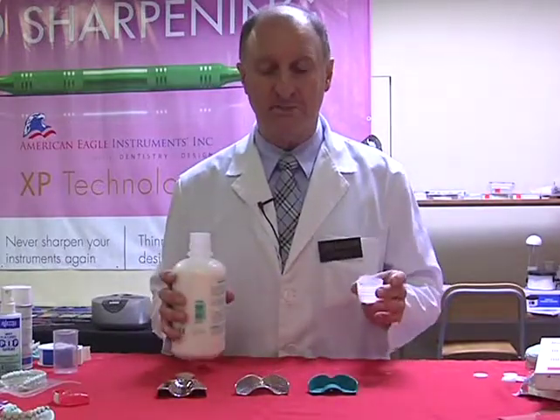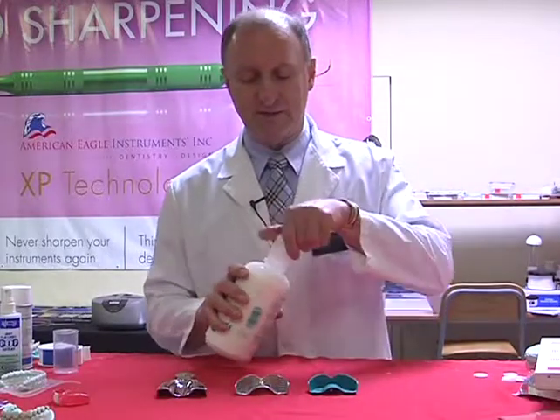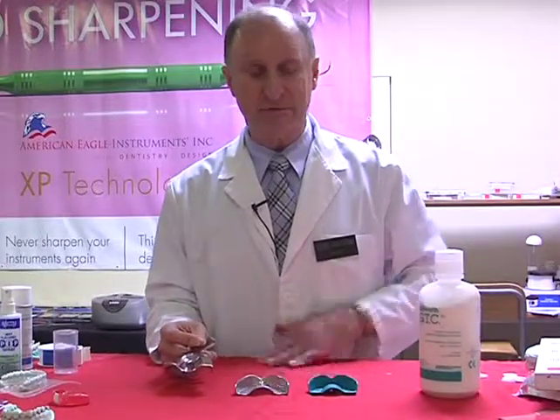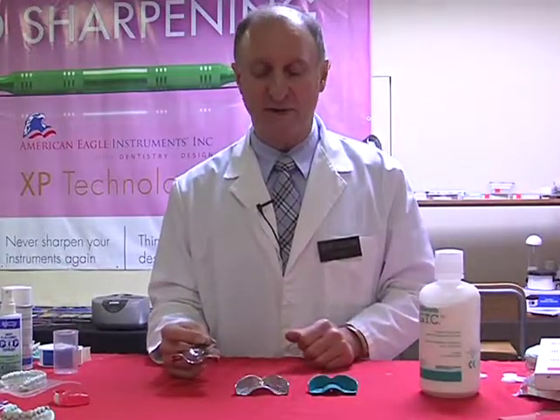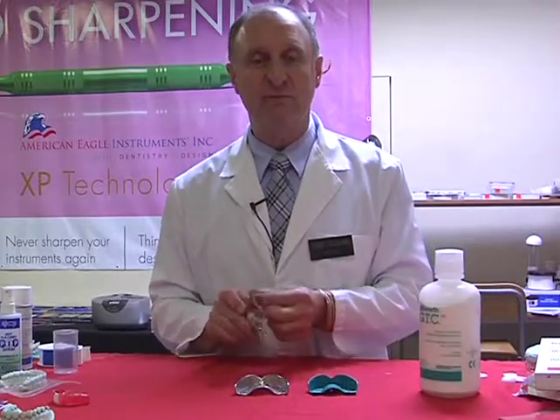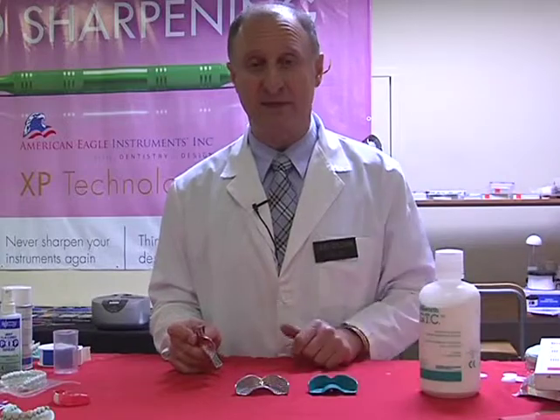In your regular bath of water that you're going to be putting this into, it dissolves fast, and then they're left to soak. Anywhere from 10 minutes through to, you can leave it in overnight, but most times within a couple of hours. It just will remove any residue of stone, plaster, as well as alginate.